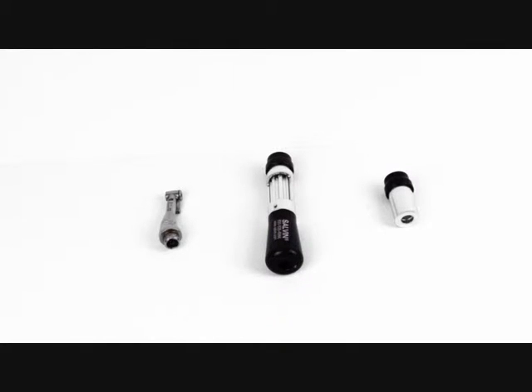It's a fantastic piece of kit for both the restoring implant dentist or the surgical implant dentist.